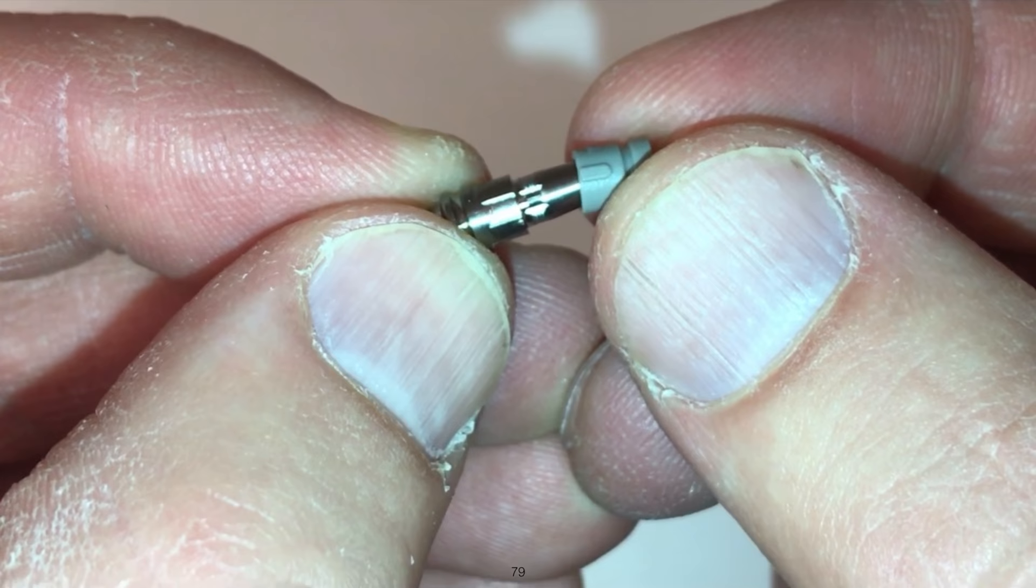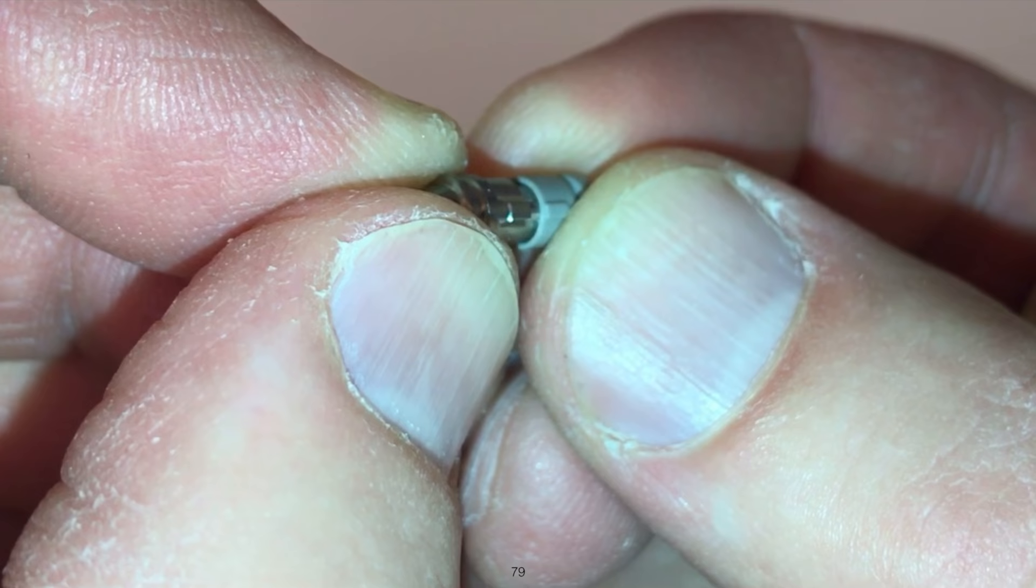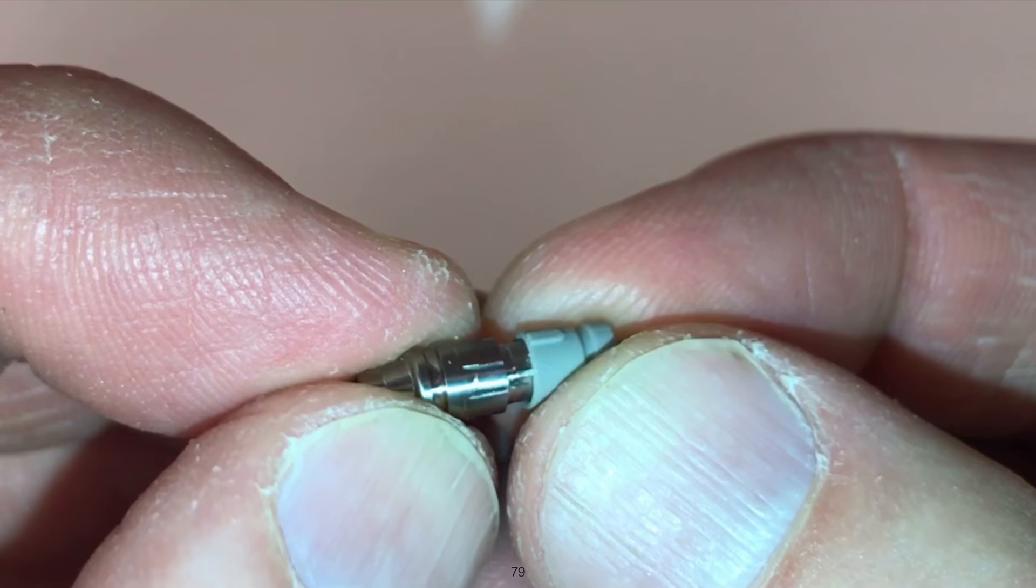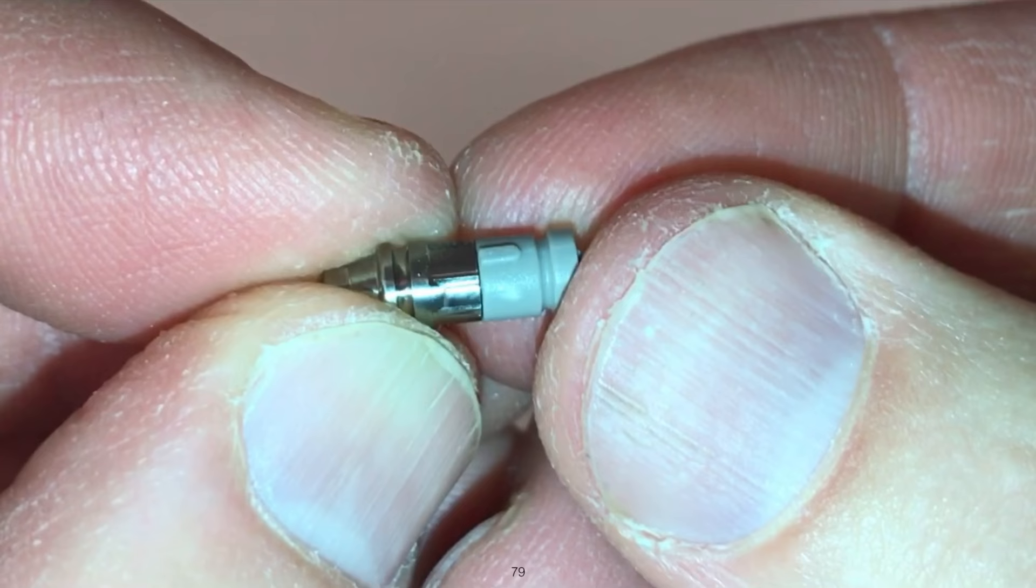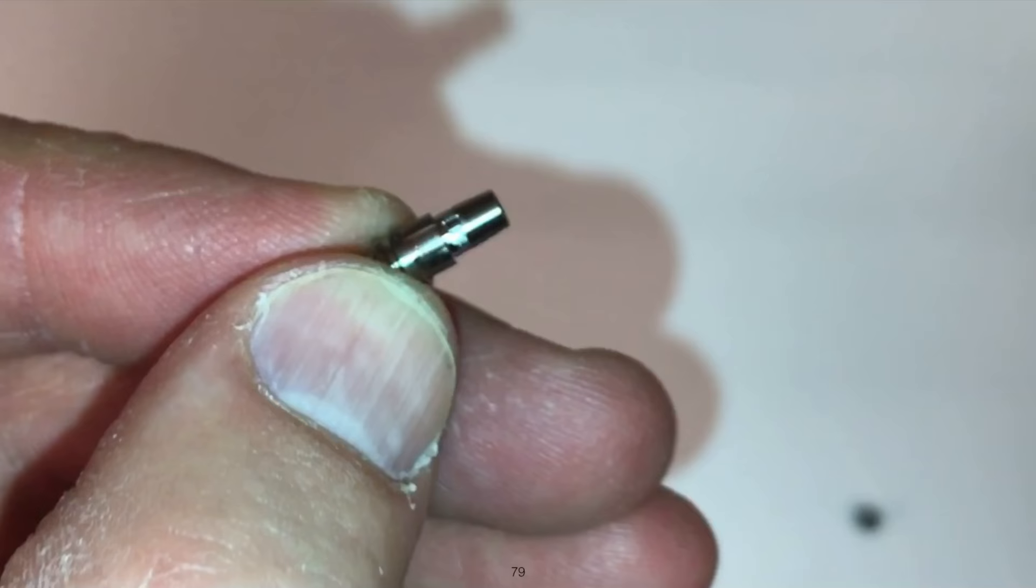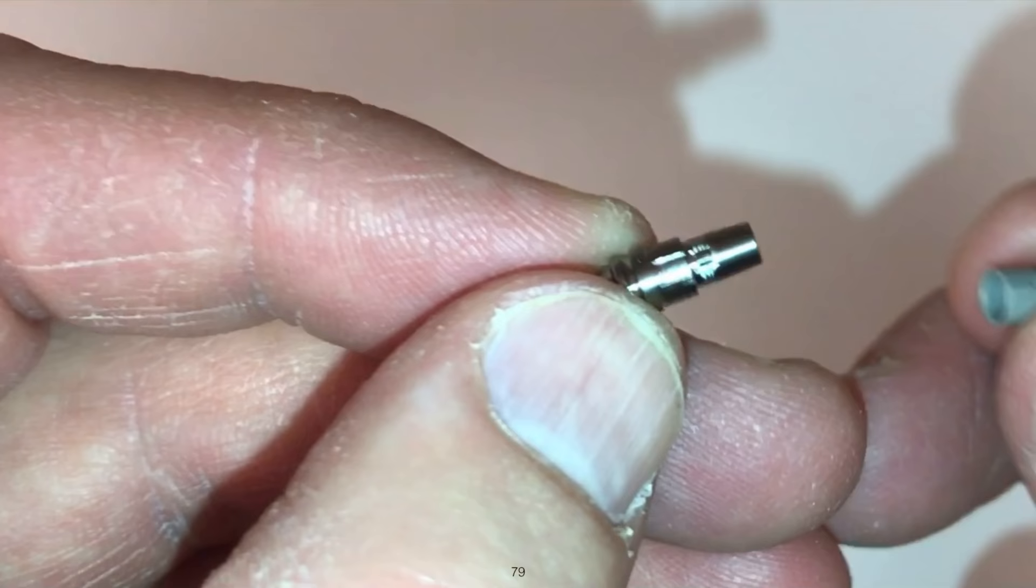Here's a scan post and I'm going to demonstrate how to cross thread this. As you can see, we got a notch and a groove, they're going to slide together. That was not too difficult. You can see how much taller that scan post is. Now watch, now I'm going to force this in the wrong orientation. You can see the little white area right here but I could get that all the way down and that's obviously not oriented correctly. So with a little bit of force you can cross thread that scan body onto the scan post or the tie base.